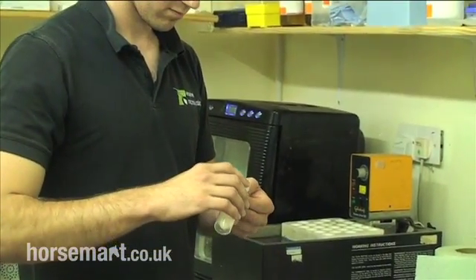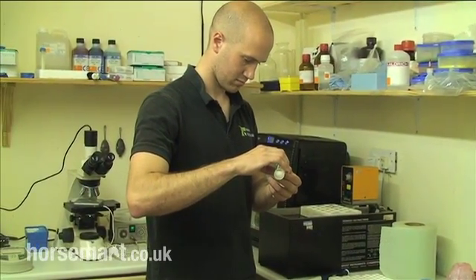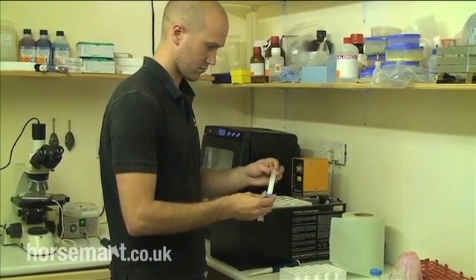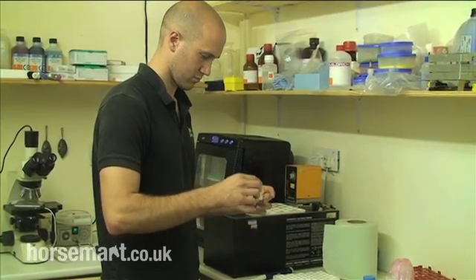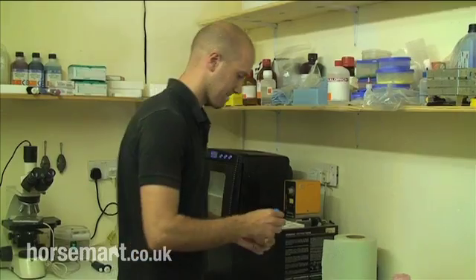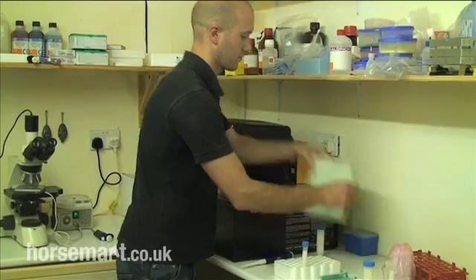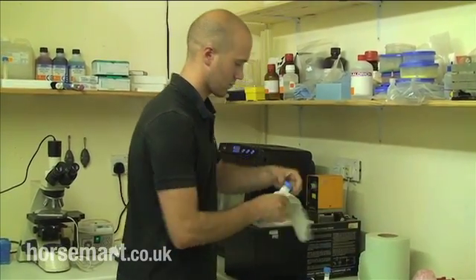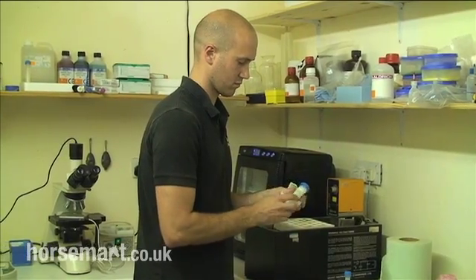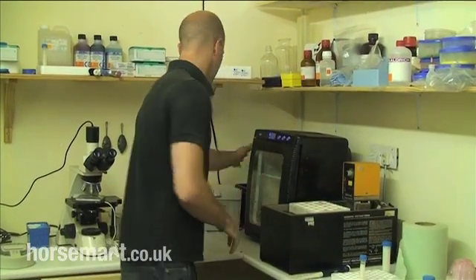Concentration is important because we need to know how many sperm are in the ejaculate — how many sperm we're going to be shipping or breeding a mare with. A higher total number of sperm is better because it allows you to breed more mares with a single ejaculate. Similarly, if concentration is too low, we run into issues diluting the toxicity of the seminal plasma adequately. We want to see a concentration that's an absolute minimum of 100 million sperm per mil in raw solution. Over that is good — we can dilute adequately to achieve mitigation of that toxicity.